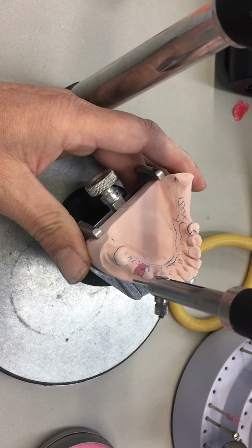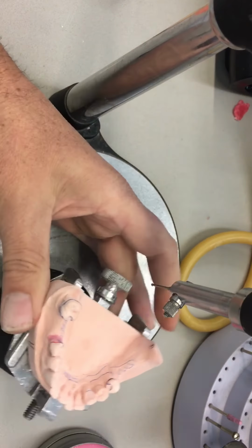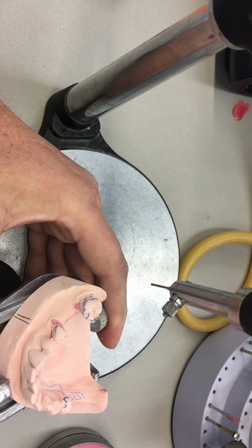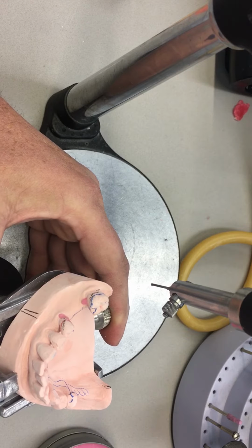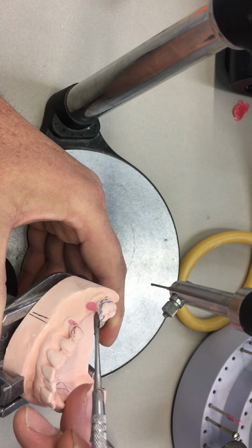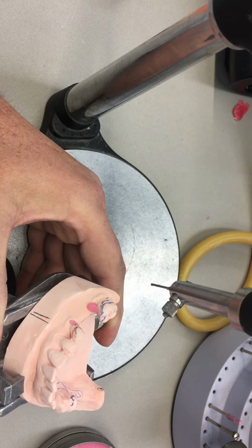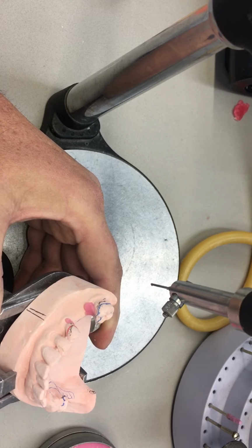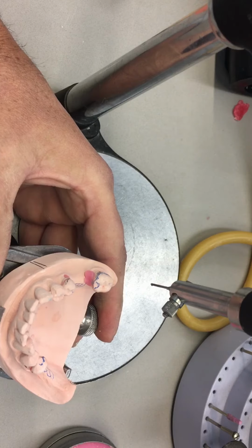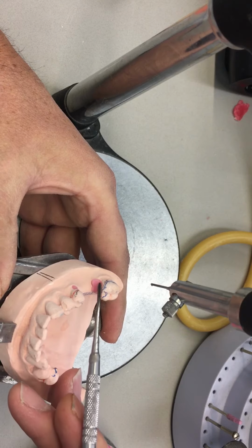So I would start off with the guide planes. You can start off at any one of the abutment teeth that you wish, and scribe the wax off below the height of contour on the guide plane. On this surveyor, I'm using a straight analyzing rod, doubling as a surveying rod. I think in the more professional surveyors, they would use a tapered scalpel or a tapered tip, possibly even heated, so that you'd have more time.